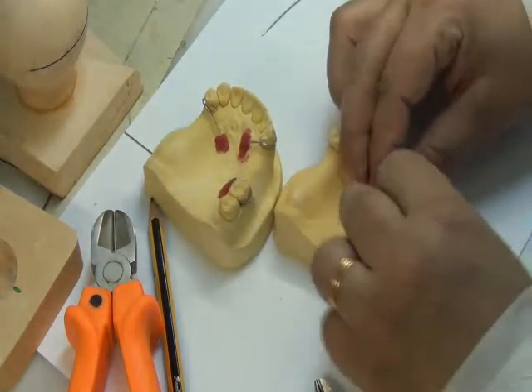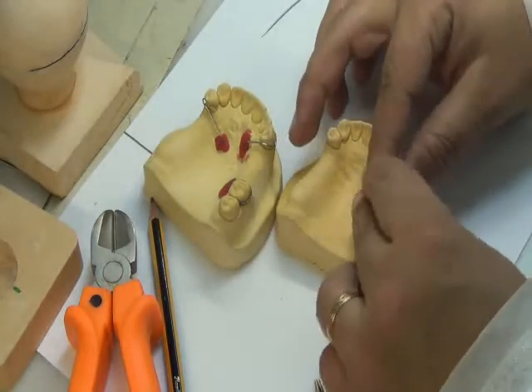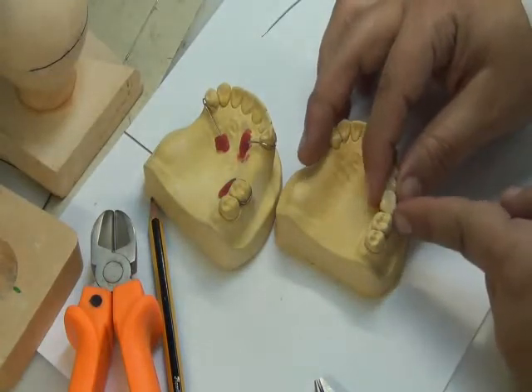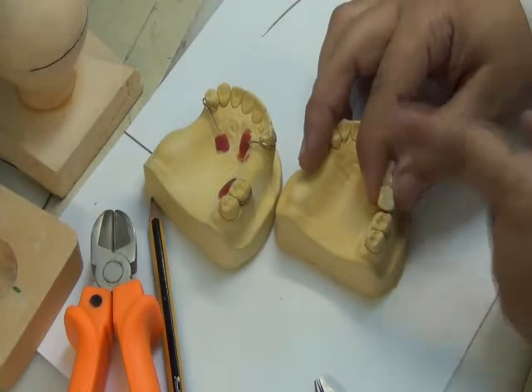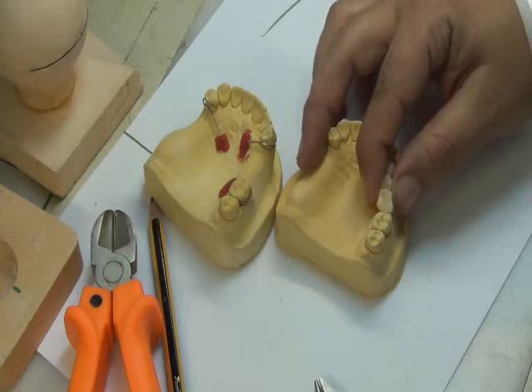For example, in this case, it's a bit crowded. I'm trying to put the teeth in location, but it's a bit crowded. I could come with my trimmer, with my acrylic bur, and trim just finely the surface here and the mesial distal surfaces of each tooth, and it will fit. So a discrepancy of 1 millimeter, 2 millimeters, it's okay. You can simply distribute the extra space or extra dimensions in between the teeth.